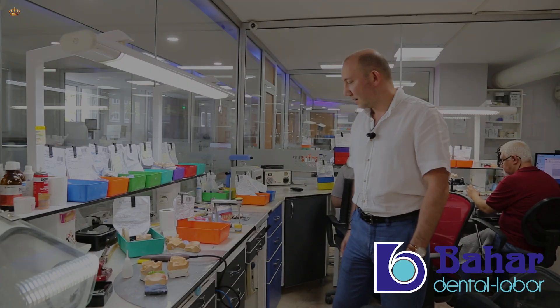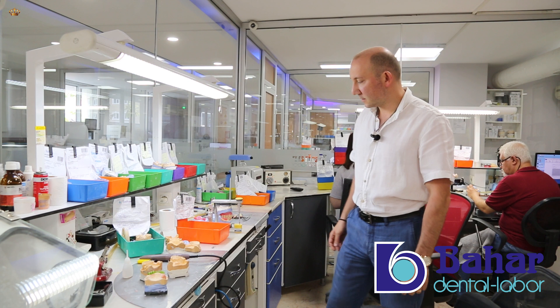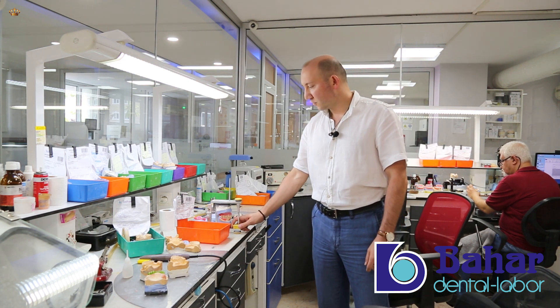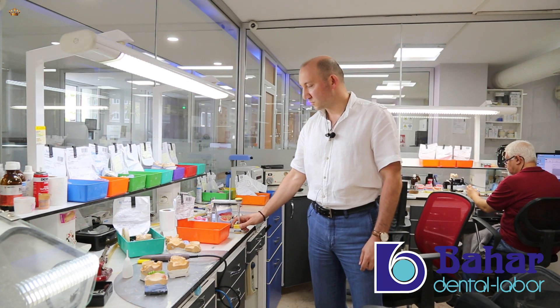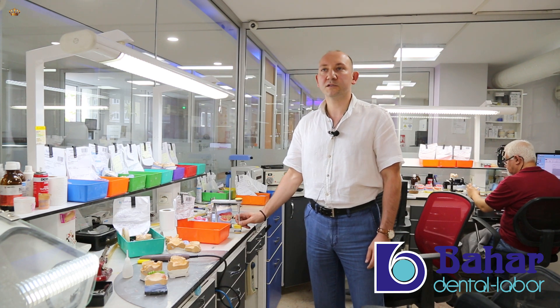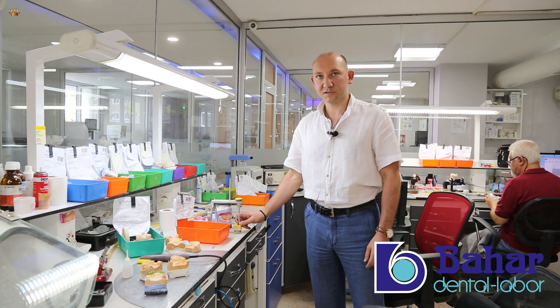The most preferred in Germany, telescopic dentures, are provided by our professional staff in the shortest time possible.